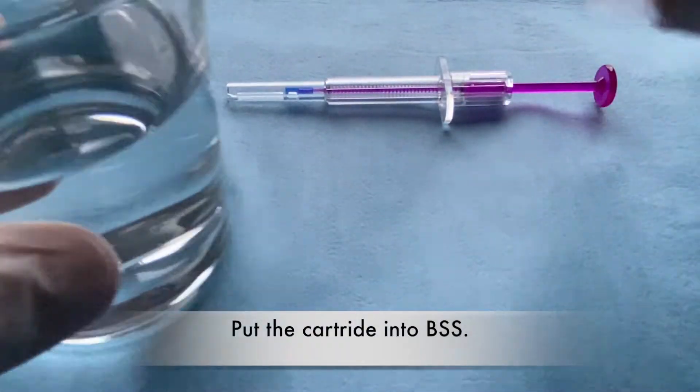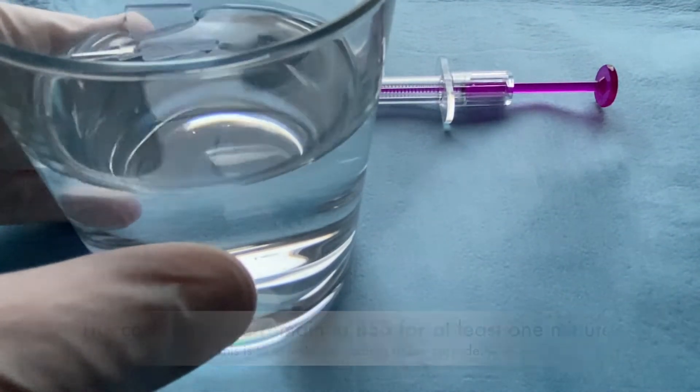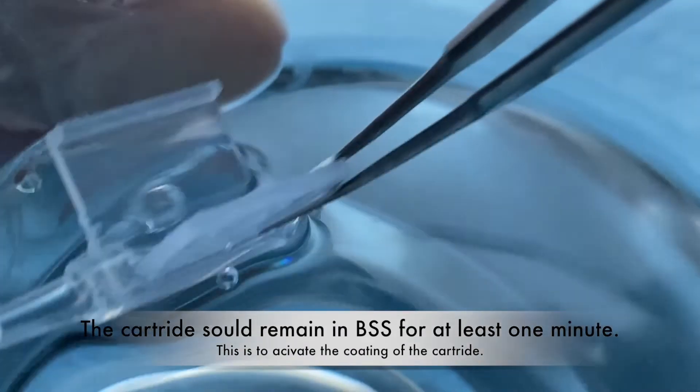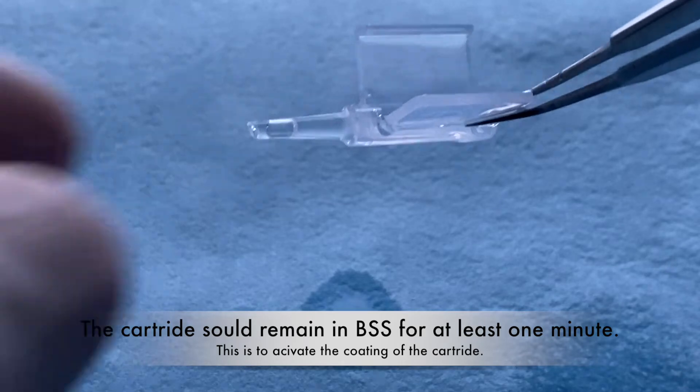Put the cartridge into BSS. The cartridge should remain in BSS for at least one minute. This is to activate the coating of the cartridge.